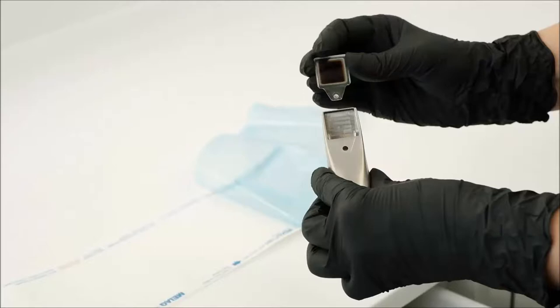After calibration, both the scanner and the sleeve must now be wipe disinfected. Insert a new disposable window before starting the scan procedure inside a patient's mouth.